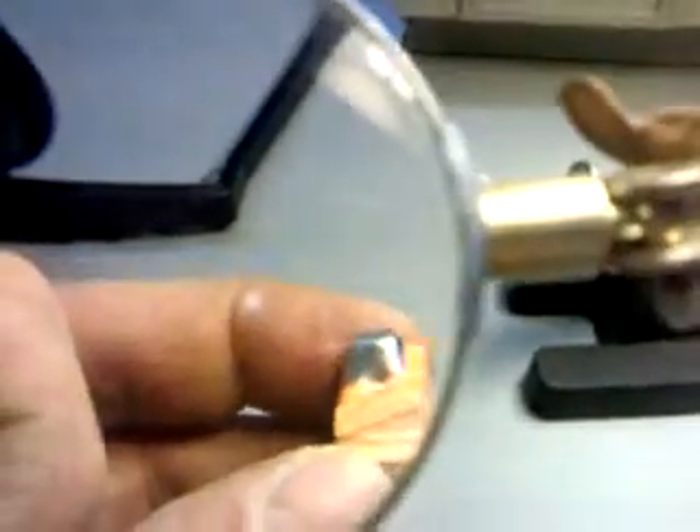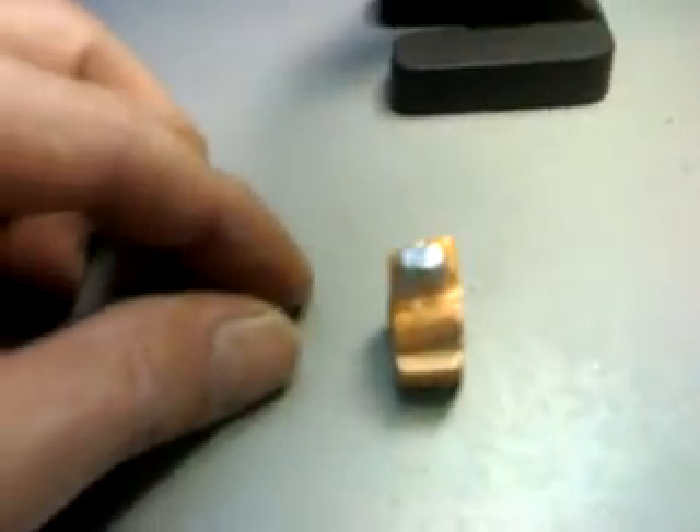This is done for containing the cost of post cores, which sell very cheaply. The next step is to put them inside the ultrasonic for cleaning, and then out for delivery.